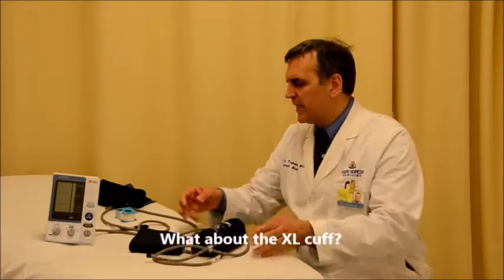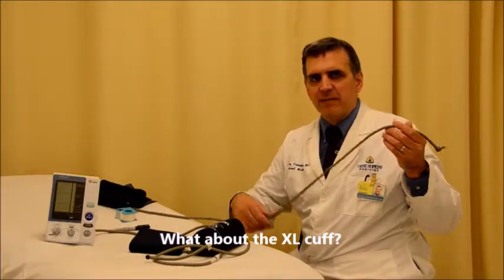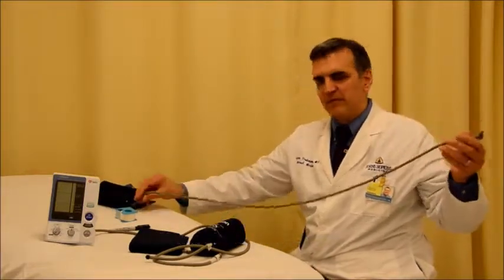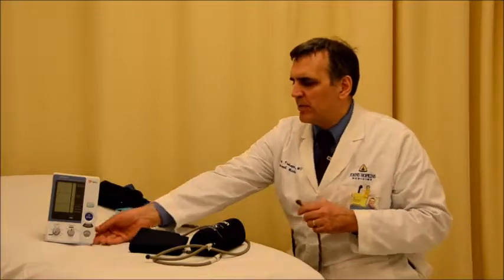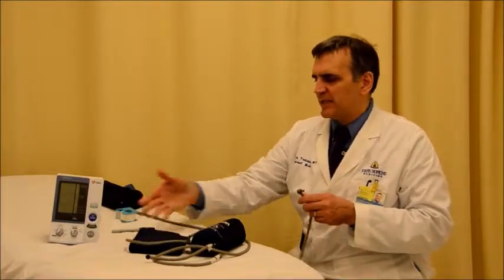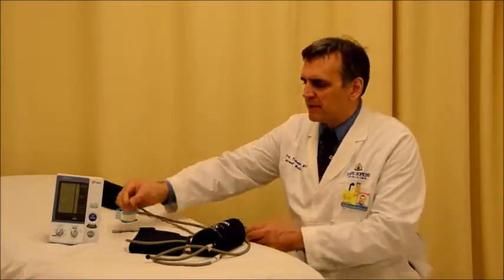The tubing for the extra large cuff is different. It does not have a black plastic coupling, it's just one long piece of gray tubing. And so when you want to use the XL cuff, you have to detach it from the monitor and plug it in there.